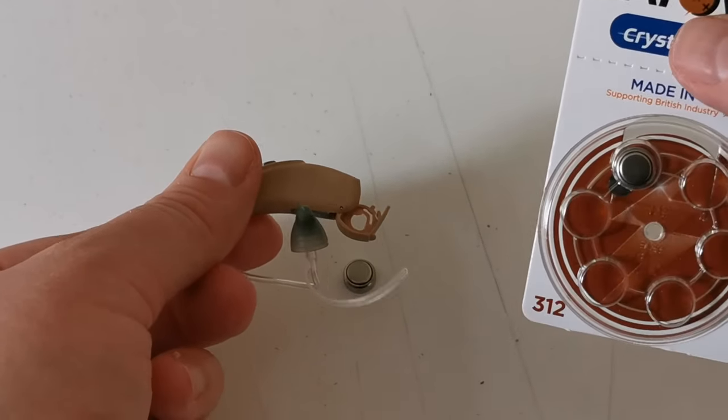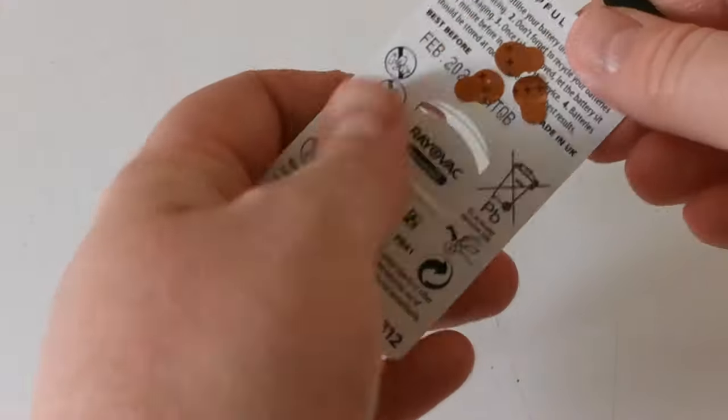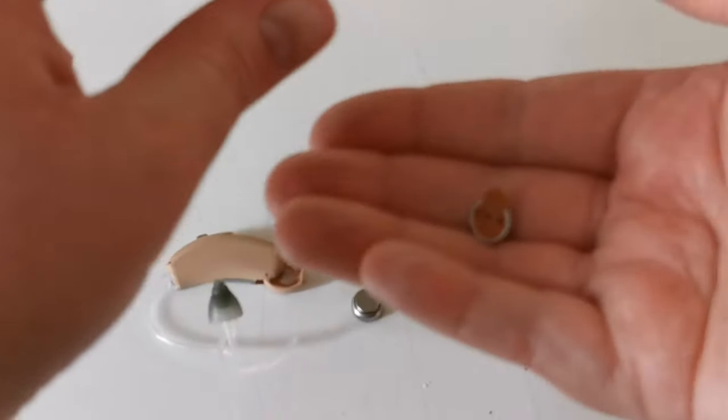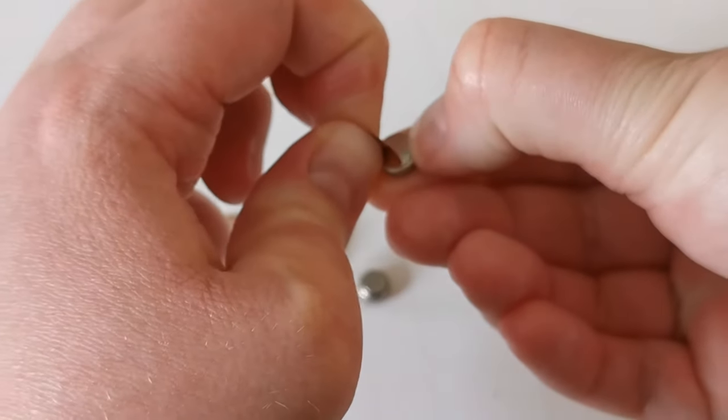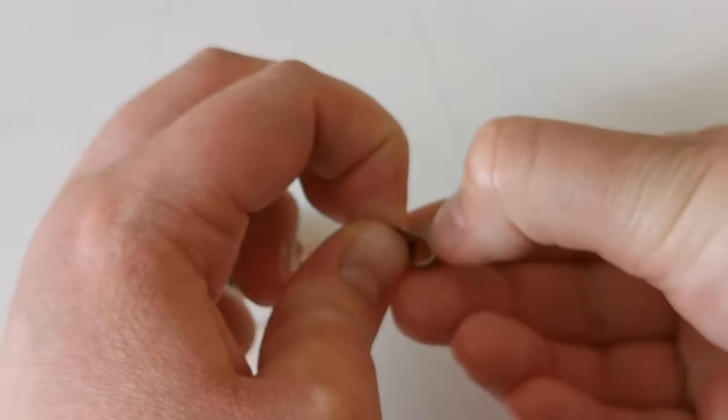You then get the new battery and remove it from the packaging. Peel the label which will expose the positive of the battery.